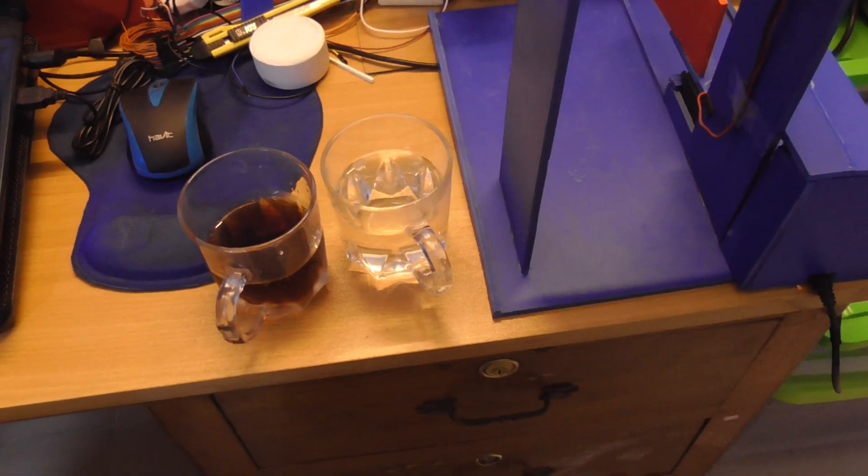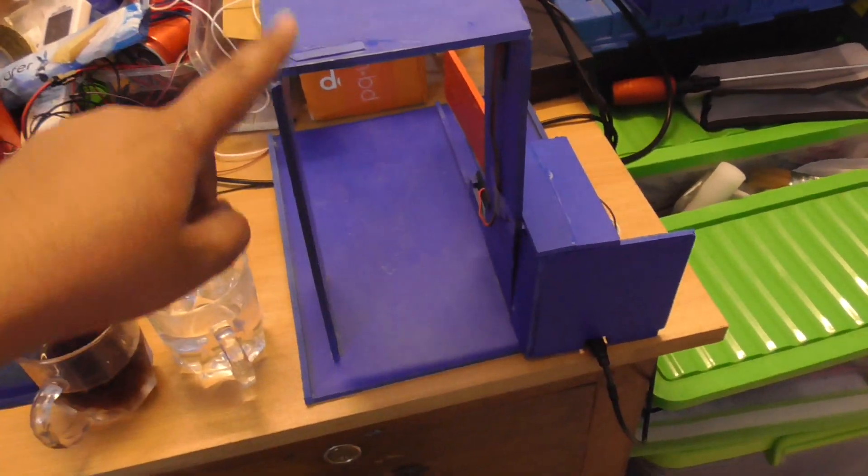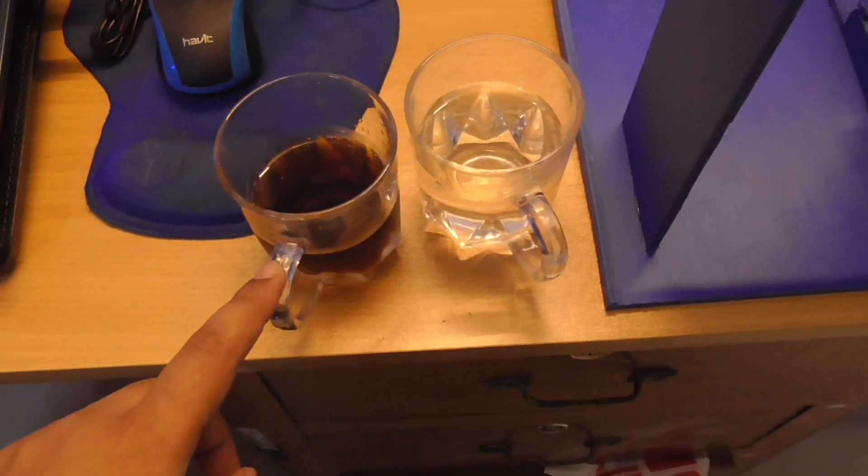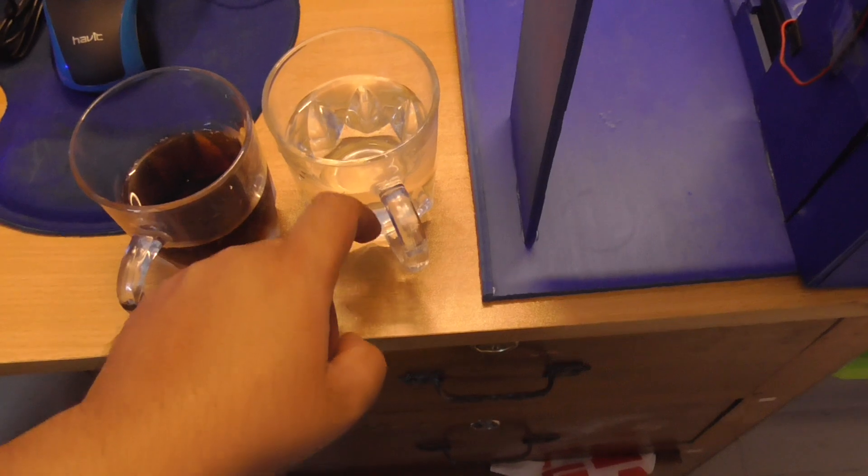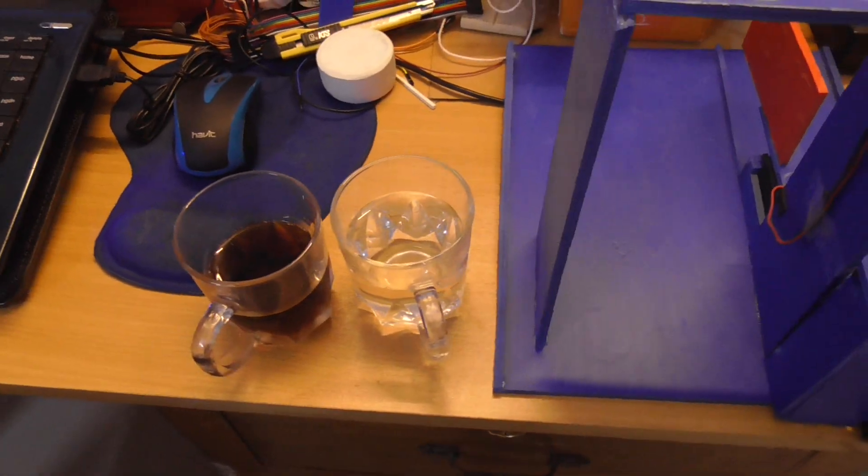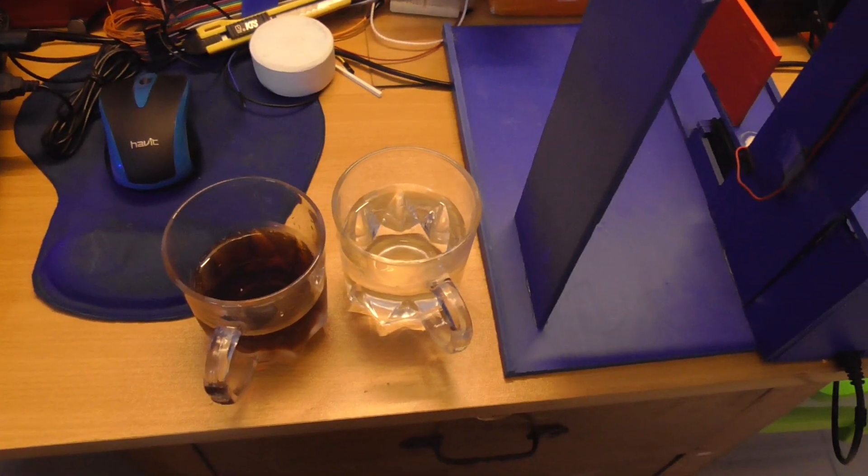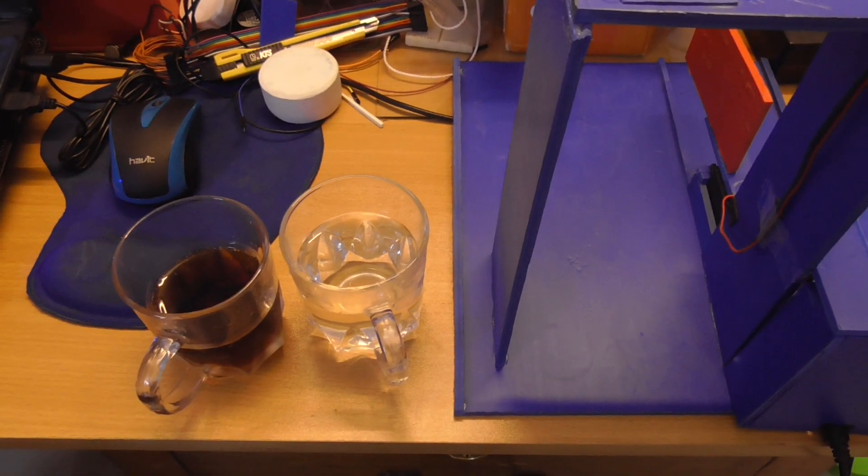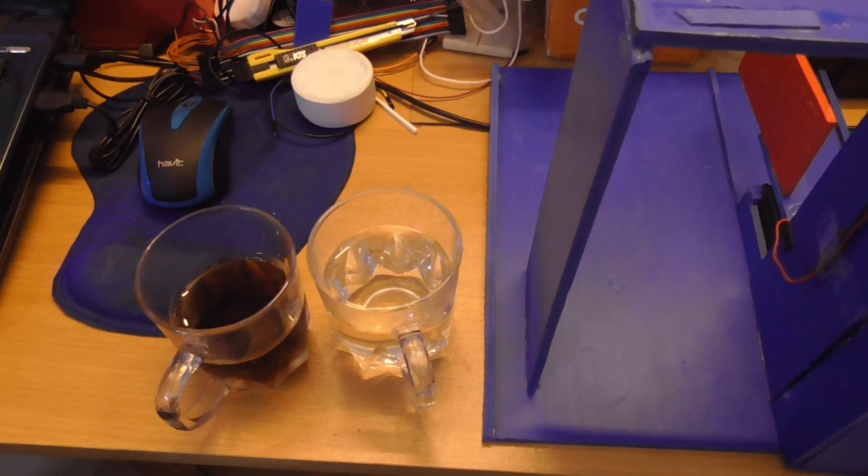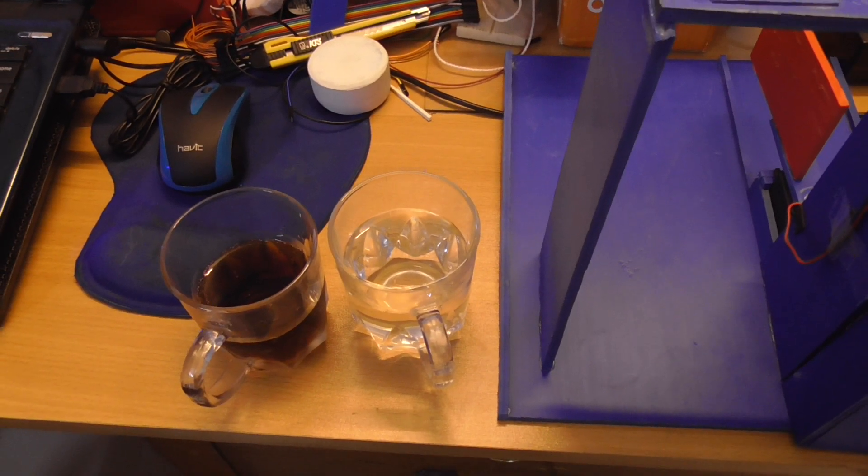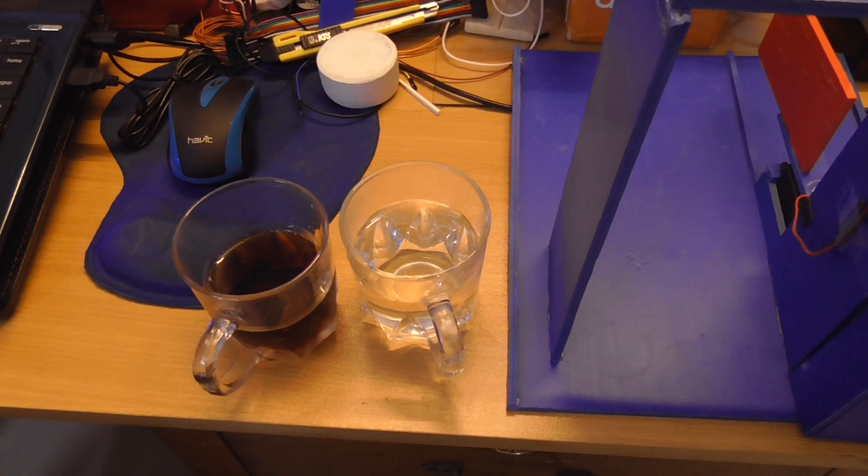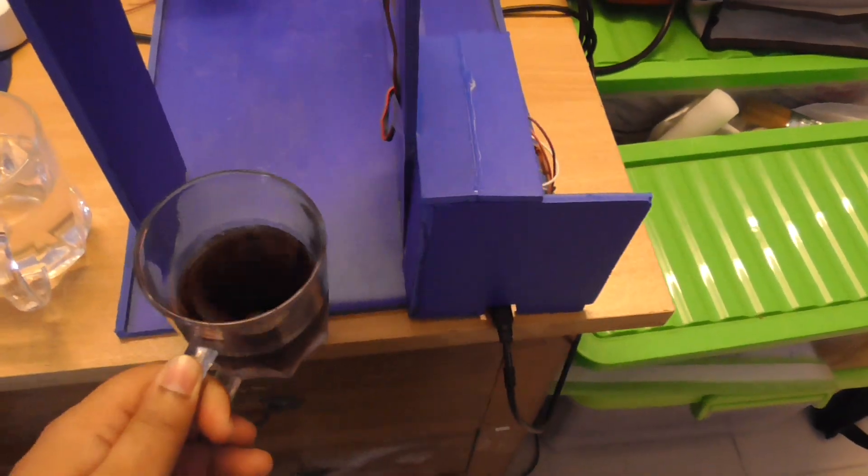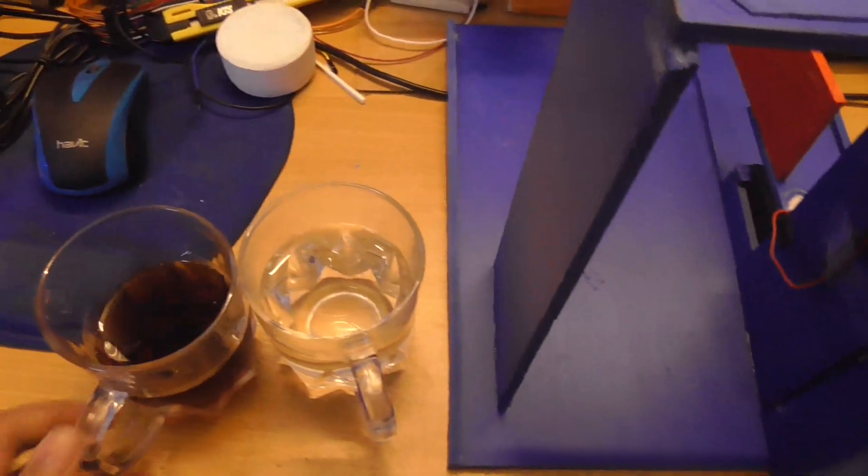This is our temperature monitoring gate. For the purpose of demonstration, we take one glass of soft drinks and one glass of hot water. The gate denies entry to anyone with temperature above 98 degrees. Below 98 degrees, it allows everyone to enter the gate. First, let's check the temperature of these two things.